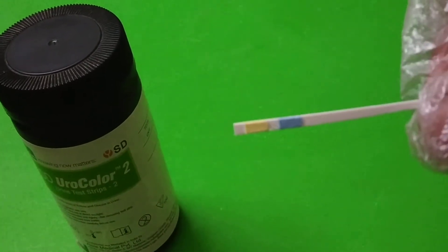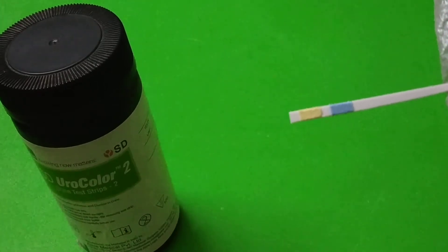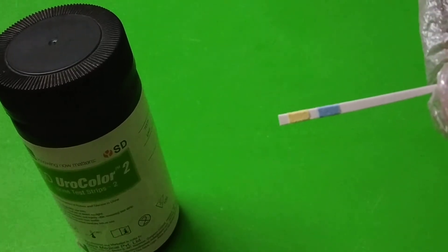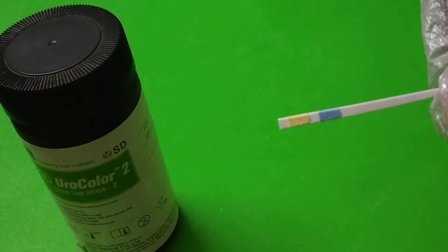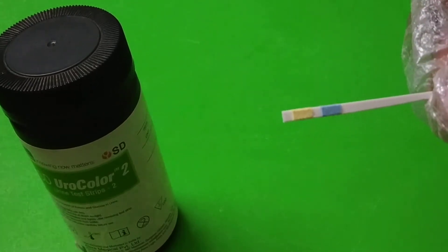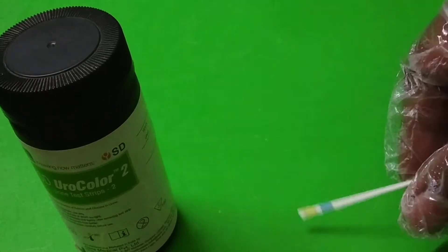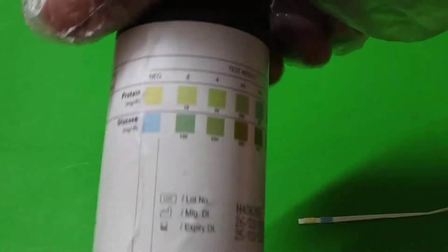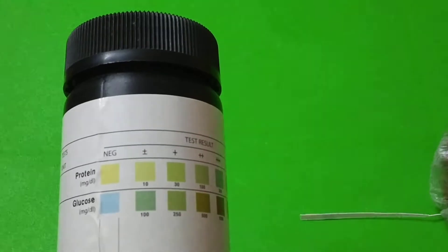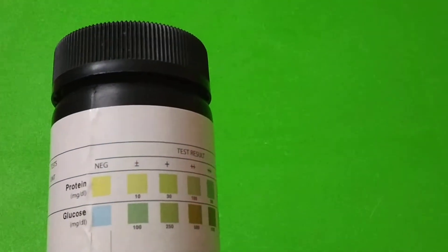The stick has a blue color strip and a yellow color strip. The blue color strip helps us in detecting the glucose, and the yellow color strip helps us in detecting the protein. If you see the bottle, it has these colors shown as a color variation chart.